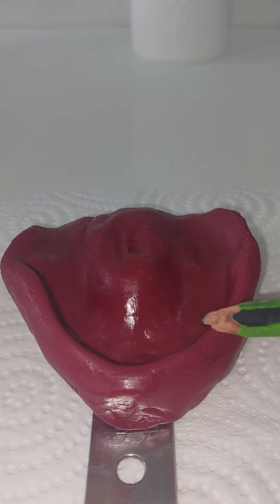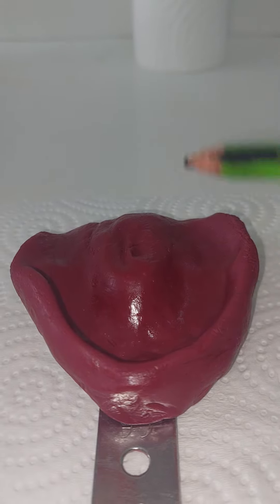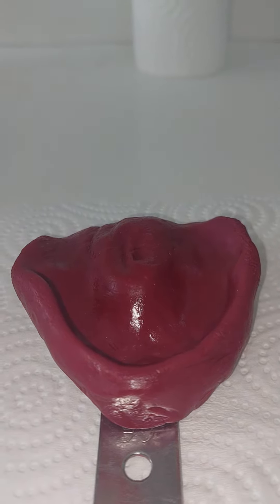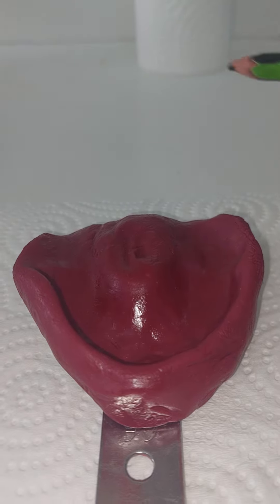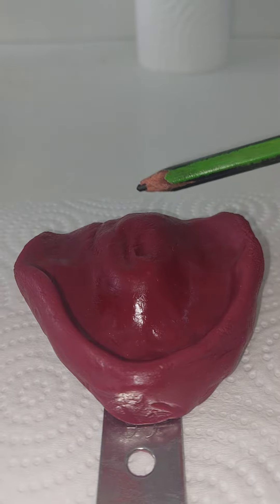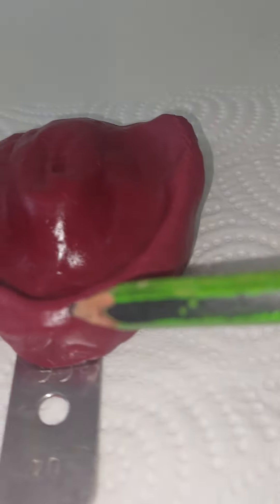And there are incorrect borders. Another reason could be the way you press. How did you press this? It should be pressed from back to anterior. Pressing from anterior to back — watch the material. It's more outside the tray here than going in.